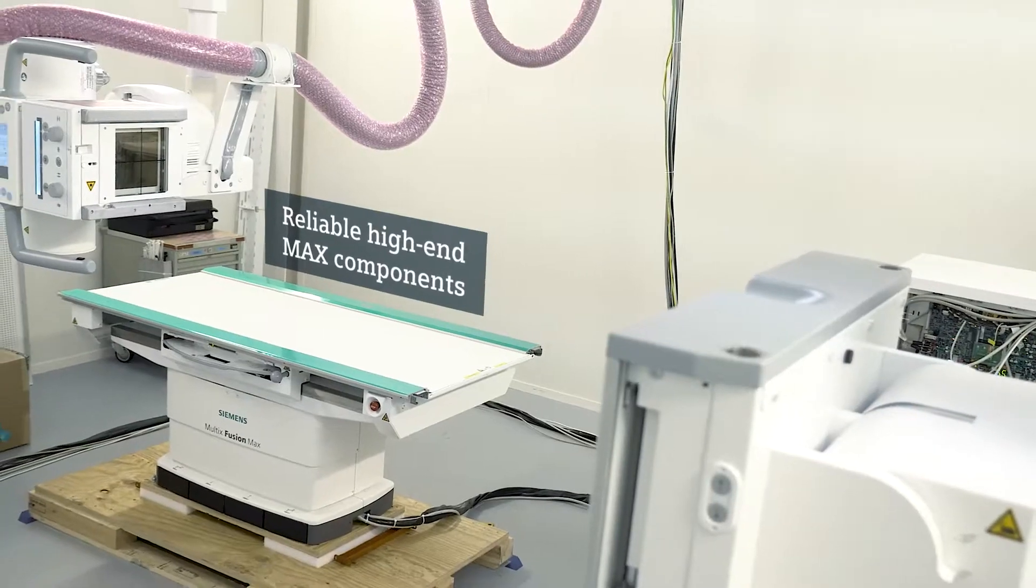My name is Otto Nefft. I'm responsible here in Forchheim, Germany for introducing and testing our new radiography systems. And I'm excited about our latest project, Multix Fusion Max.